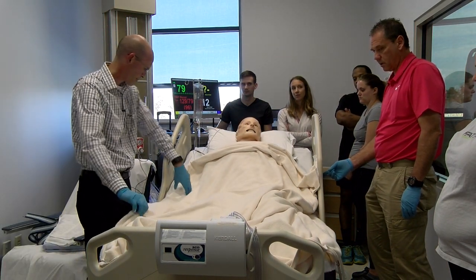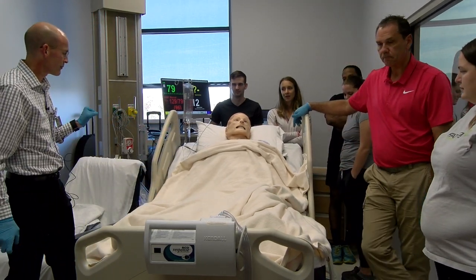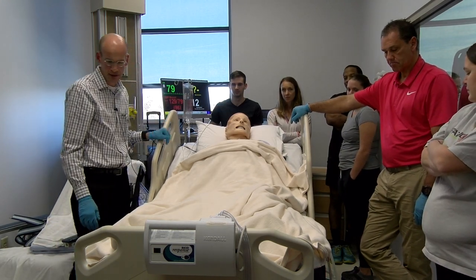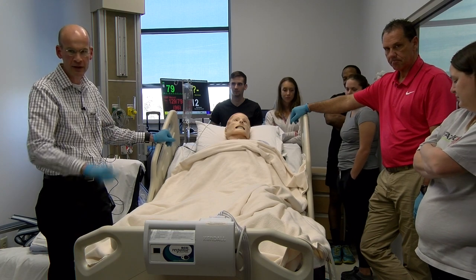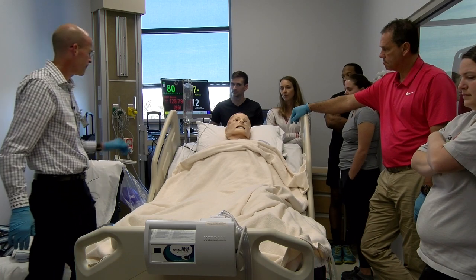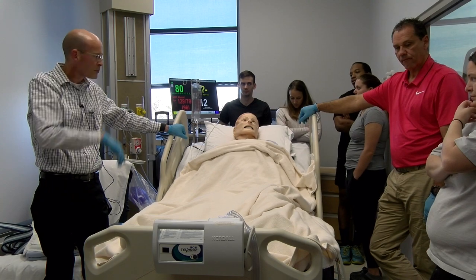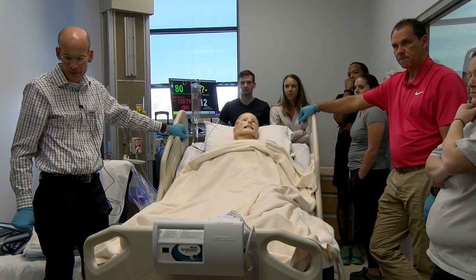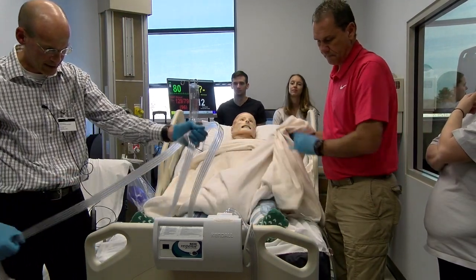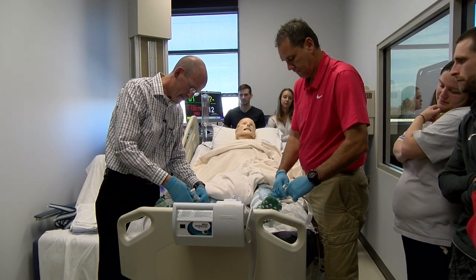And that's when you say OT. What about the rails? At least one down — at least one down. It's typical to have the two head ones up; sometimes you might have another foot rail down. Have we covered everything? Are there any questions? Did you need to plug those back in? Yes, thank you. The sleeves don't do any good unless they're plugged in — and these aren't actually made for these, so they come back out.